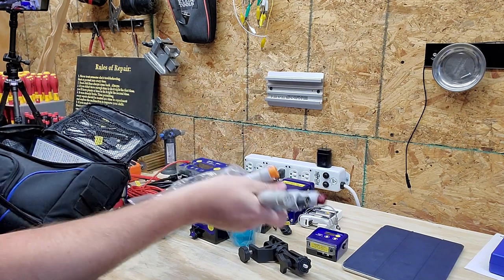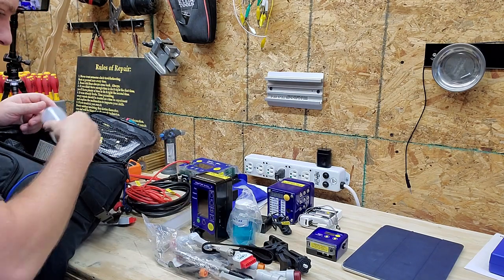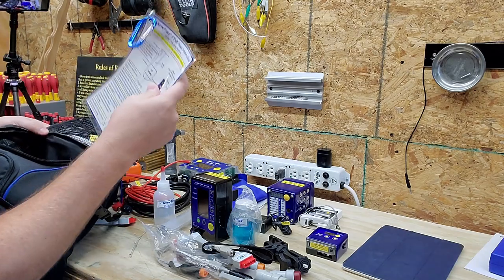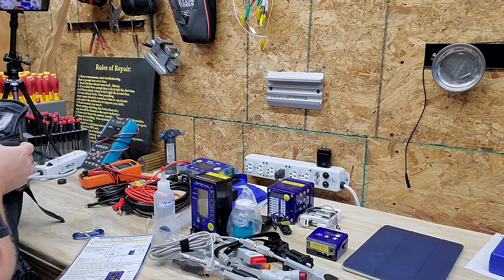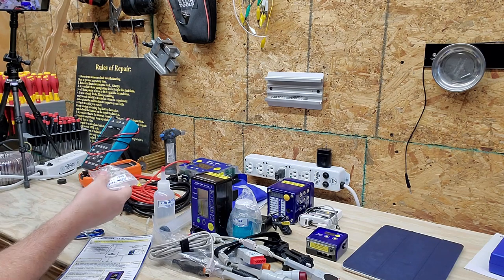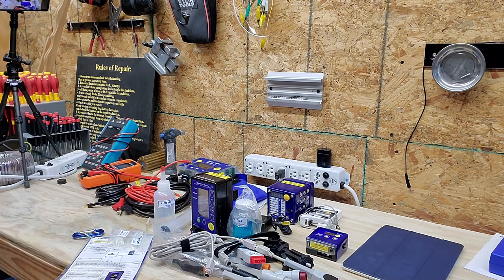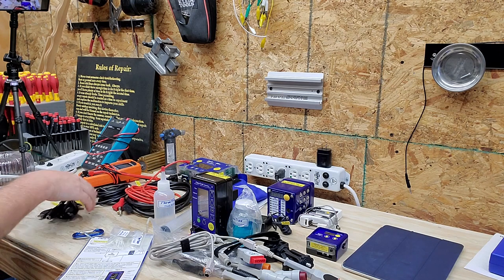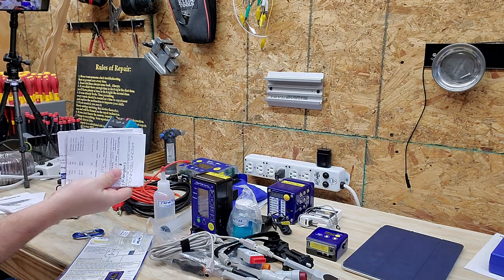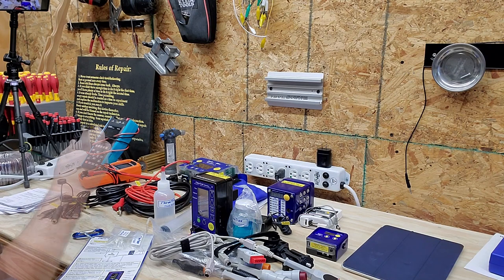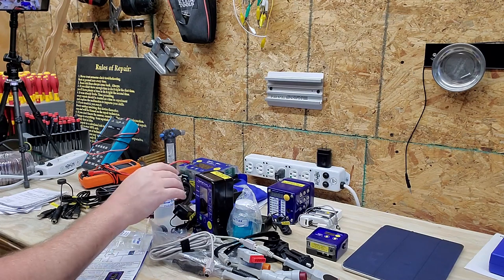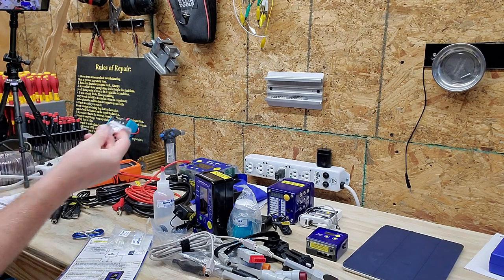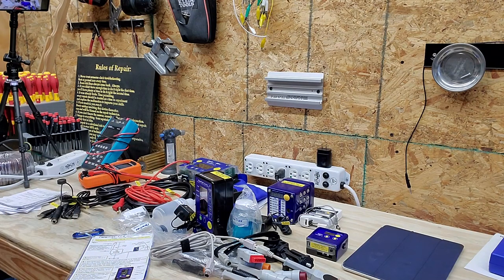It can do so much stuff and there's so many components to the Flowtrax system. I got some more pressure leads, more pressure adapters, flush bottle, clean brush, quick start card, my drainage tube, my nozzle for doing pressures, and a series of USB cords. All my certifications are kept in the backpack. I have another AC adapter for the Flowtrax.